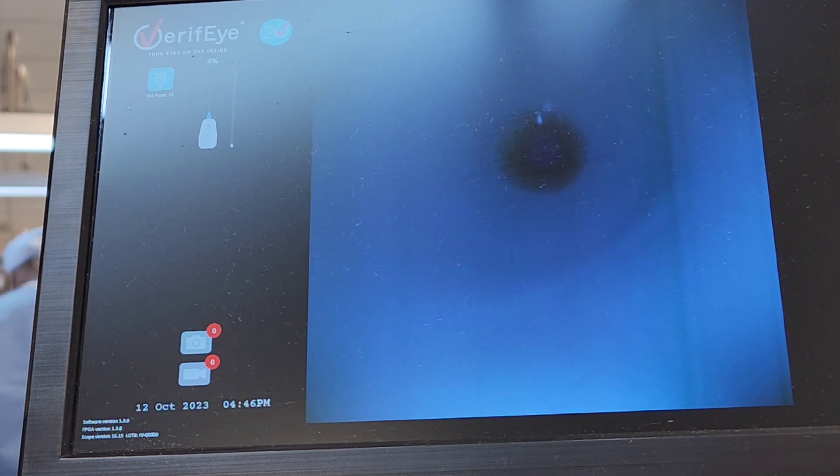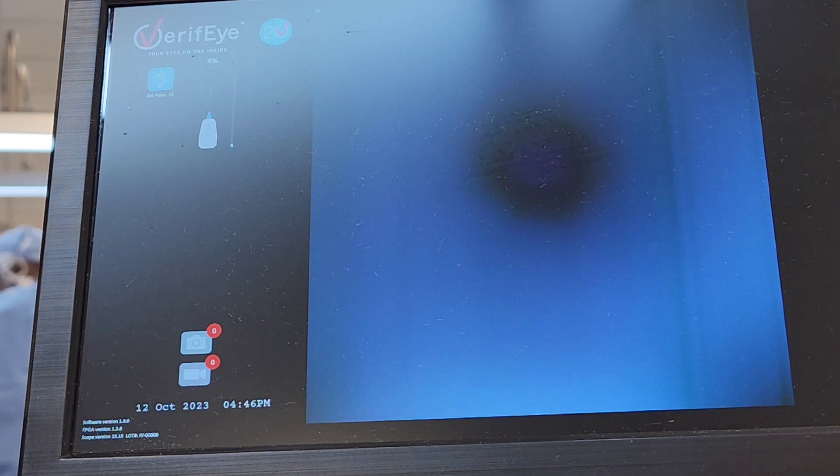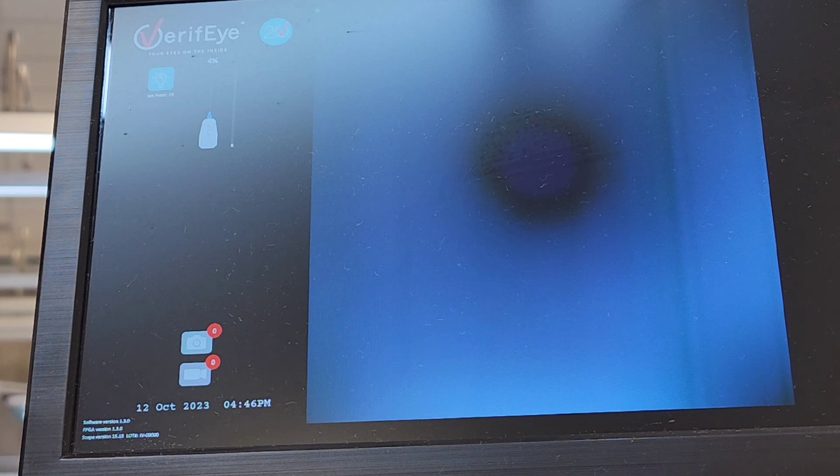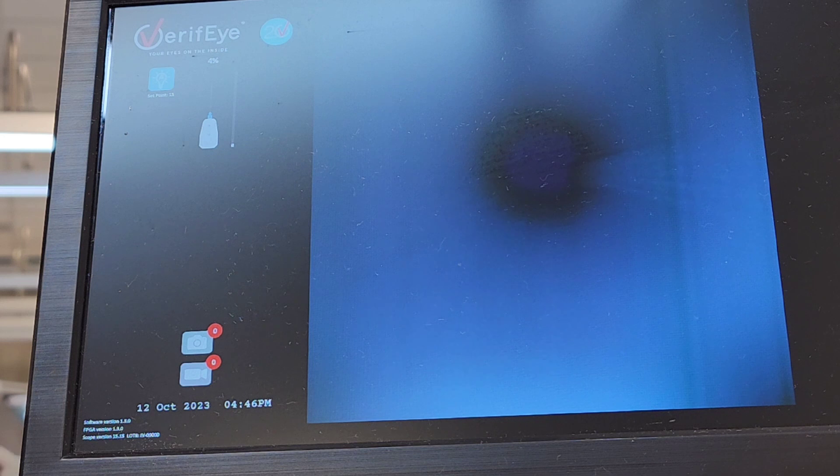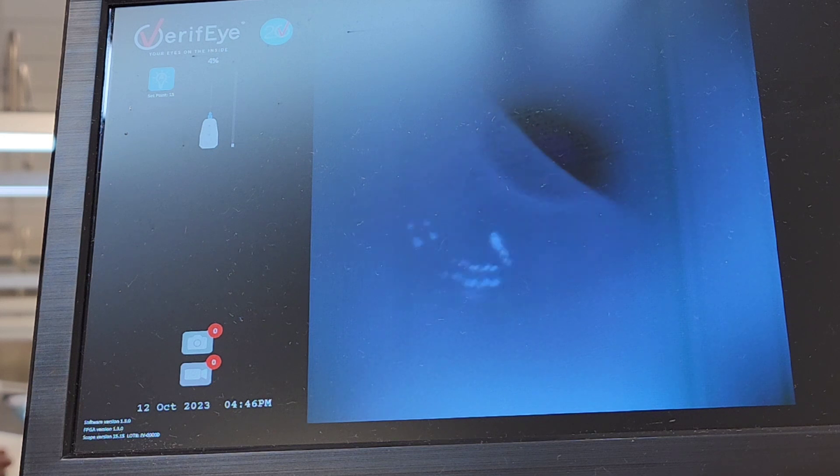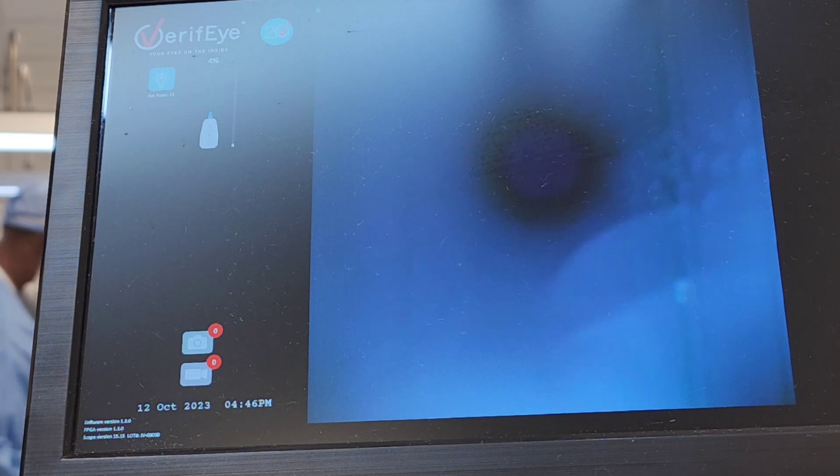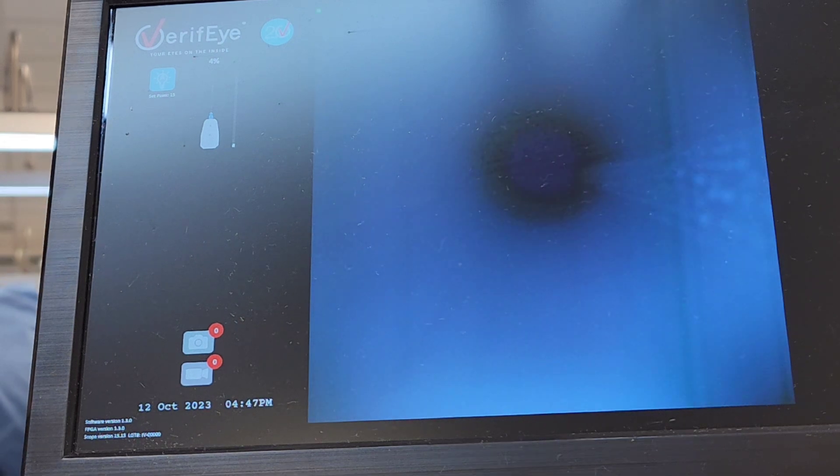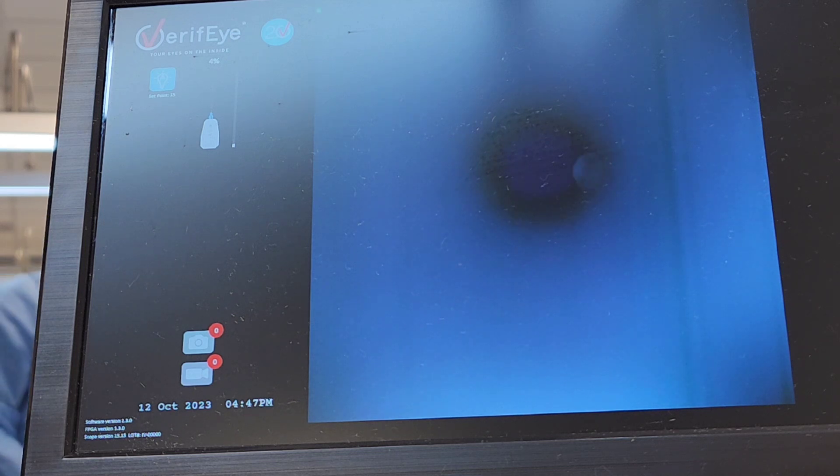That's not concerning to me. I'm looking for patches of soil or damage to that internal surface, which I believe is a Teflon coating or plastic tubing. I'm looking for damages and I'm advancing all the way through.